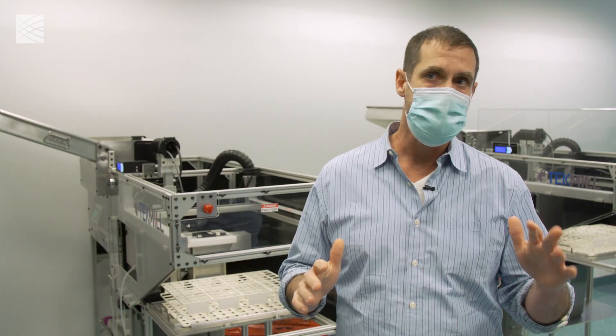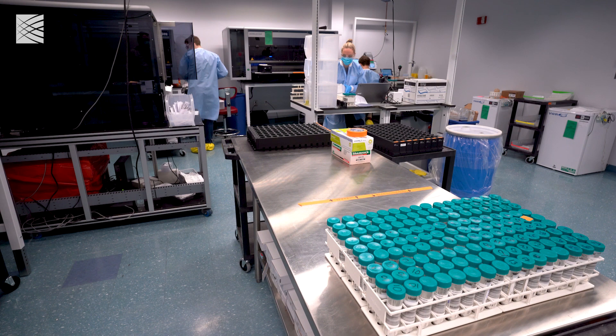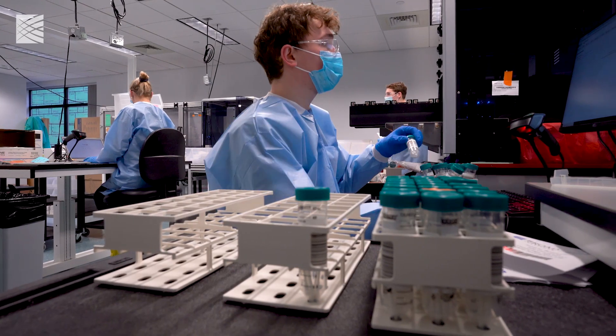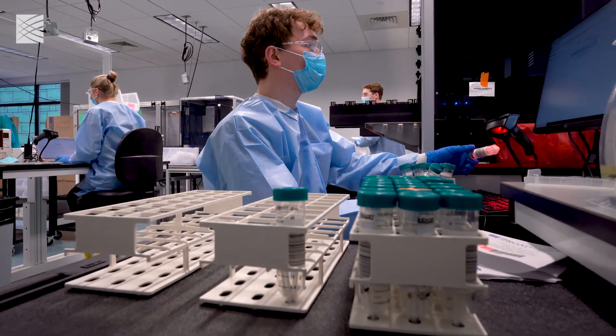To do 100,000 a day, maybe a capacity of 150,000 a day, we've filled in every square foot of this building. How do you continue to grow in terms of how many people you're surveilling, not necessarily through diagnostic testing?